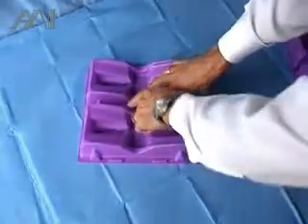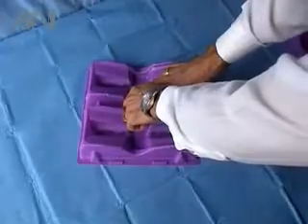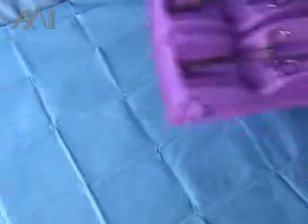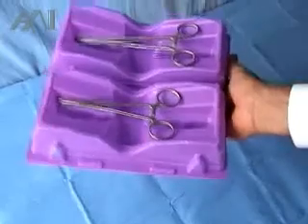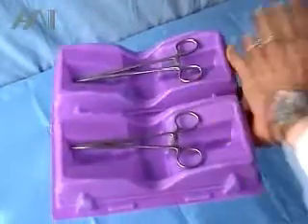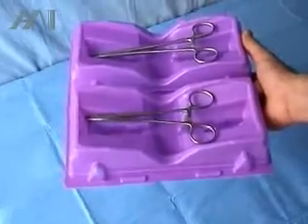Two units can be pre-attached together by pushing the snaps. Once they are together, they can be held with one hand by putting two fingers under each tray and putting the thumb alongside the tray under the surface to avoid any chance of injury.